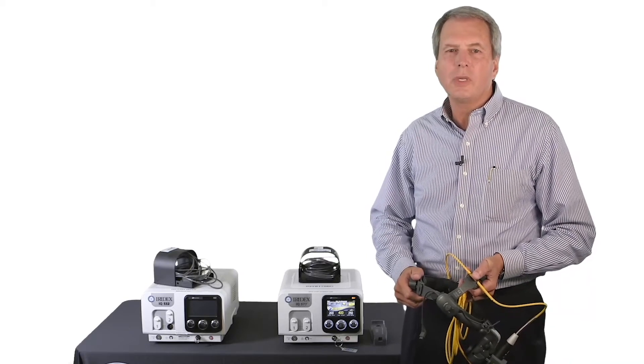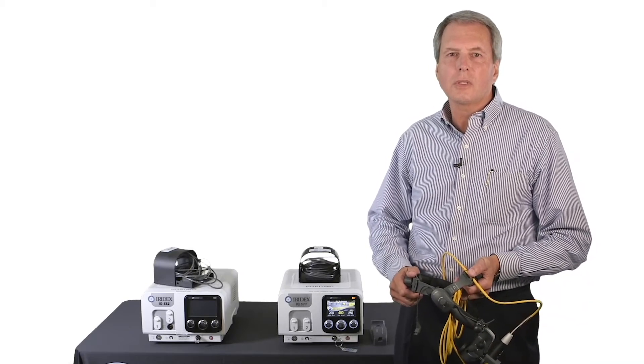Hello. I'd like to introduce you to the new Iridex TrueFocus Laser Indirect Ophthalmoscope.